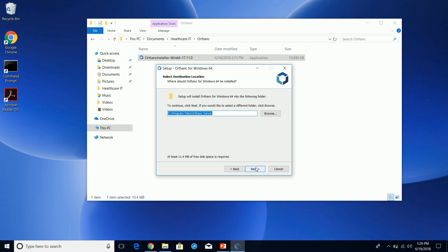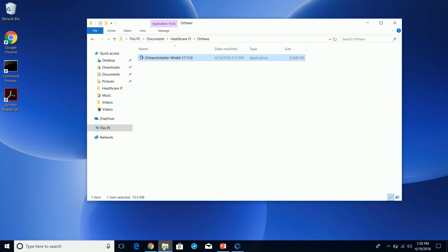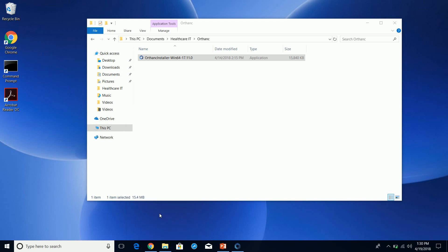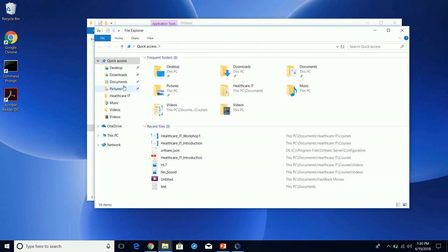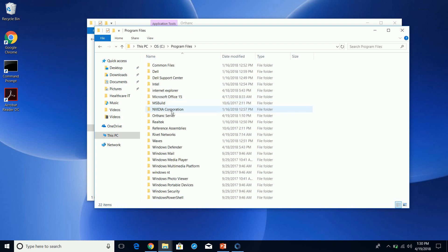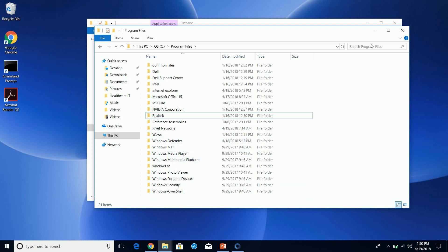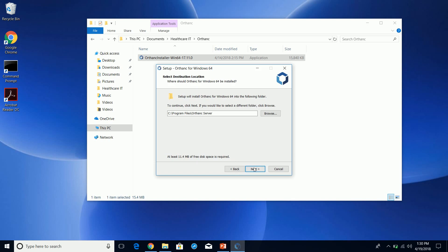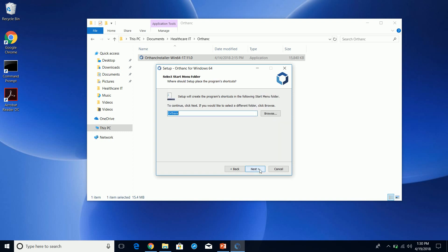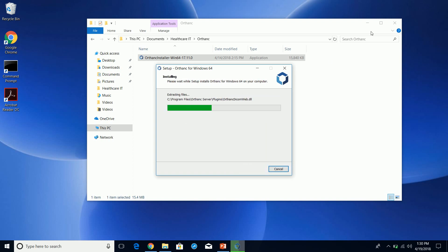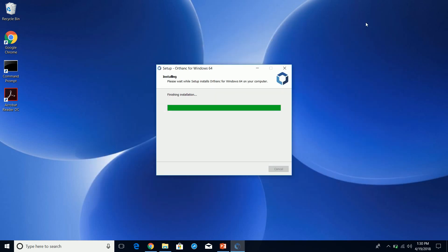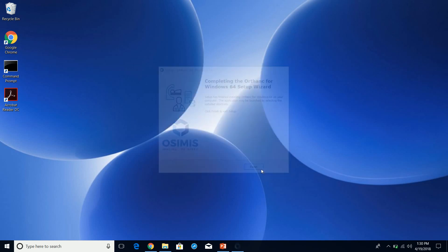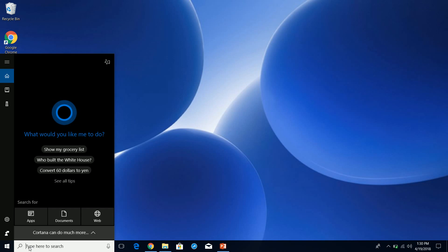Accept, leave everything as standard the way it is. I already had a previous version installed, so I'm going to just go in and delete it. You can leave everything as default and let it install. It's a pretty quick setup.